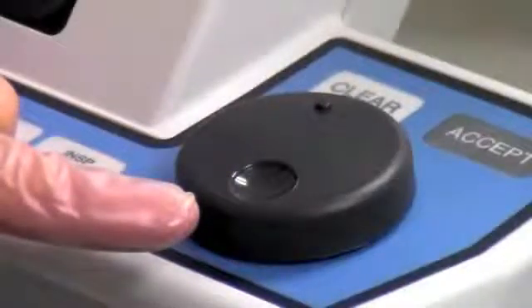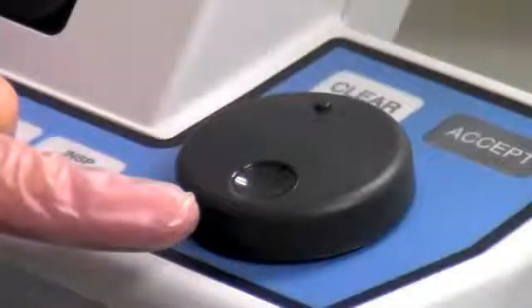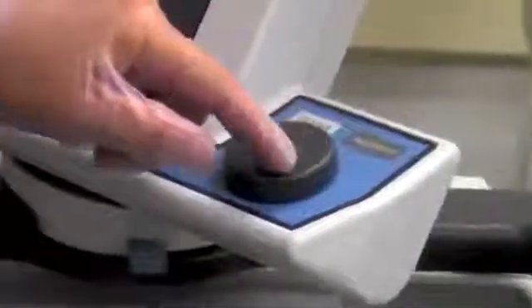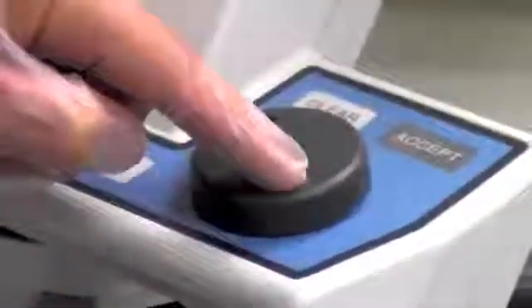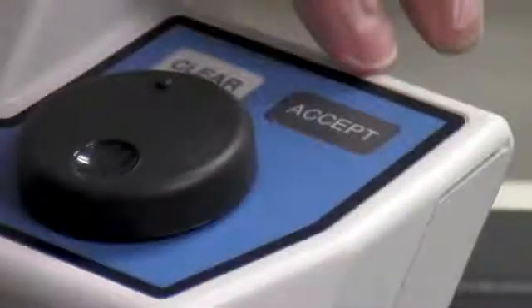The knob adjusts the value of a setting. A highlighted button on the touch screen means the knob is linked to that setting. Where applicable, a clockwise turn of the knob increases the highlighted value and a counterclockwise turn decreases it. The clear key cancels a proposed ventilator parameter value change and the accept key applies and saves new ventilator parameter values.